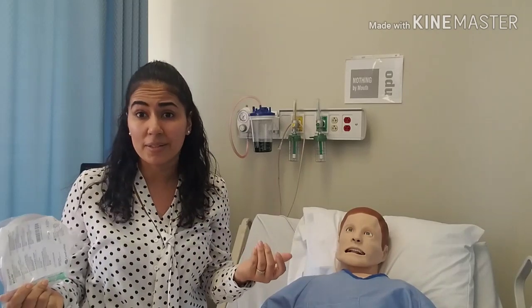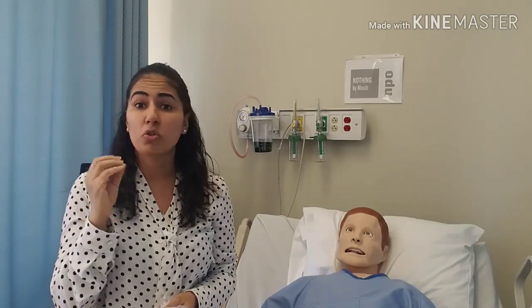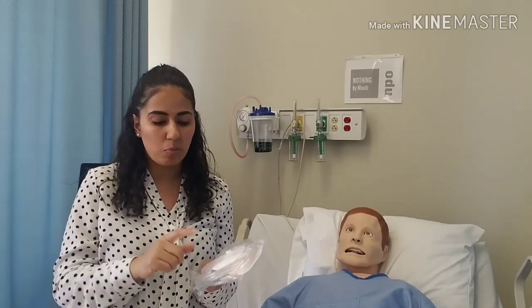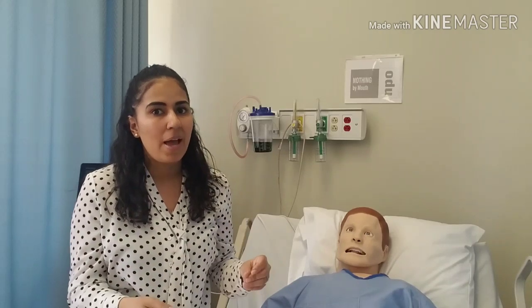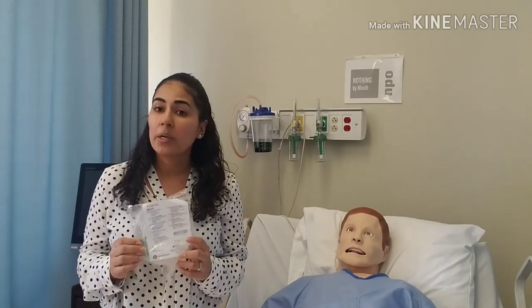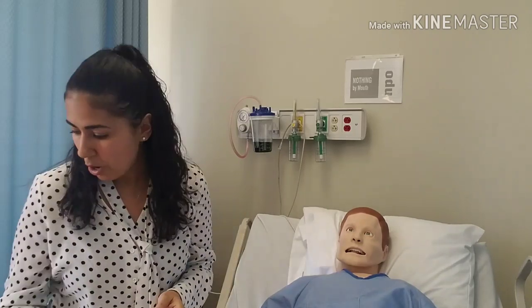The nasal cannula has several advantages — it allows the patient to be a little more free. The patient can still eat, talk, and ambulate to the bathroom, which is where that extension tubing comes in. Sometimes I have to persuade my patients to use the oxygen when they go to the bathroom, because if a patient is sitting in bed and is short of breath, when they exert themselves they'll be even more short of breath. You always want to encourage them to keep oxygen on while ambulating.